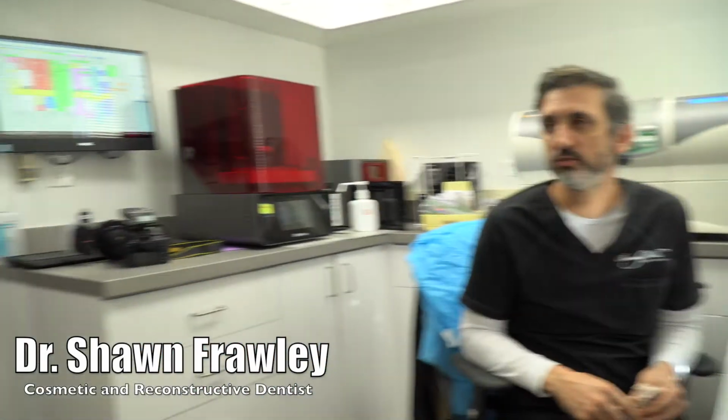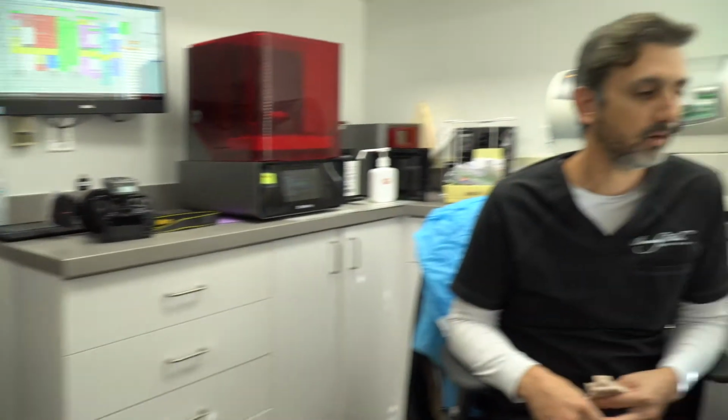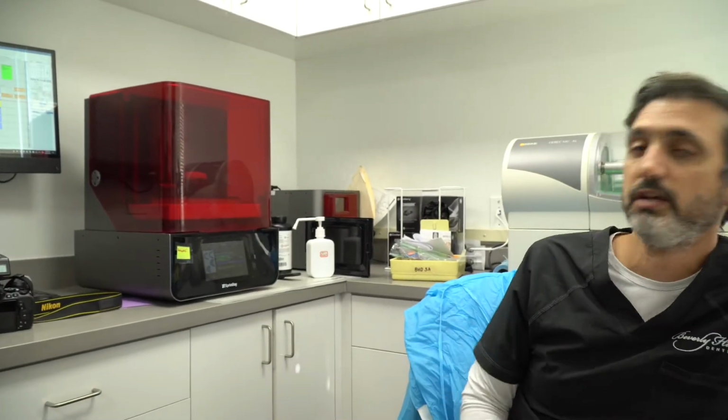So we're here in our newly remodeled lab. This actually used to be our staff room, but we had such a need for space to work on the cases that we do and to house the technology that is necessary to execute these cases, that we really needed some dedicated space. So we found some other space in the building for our staff.